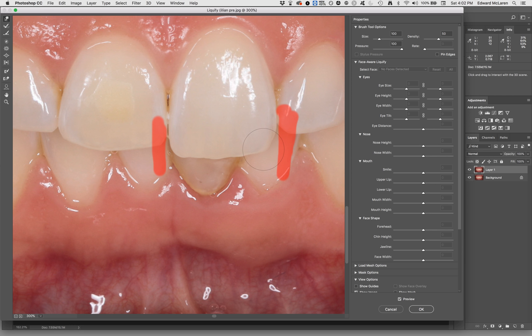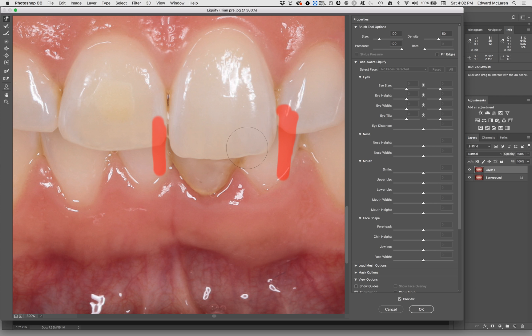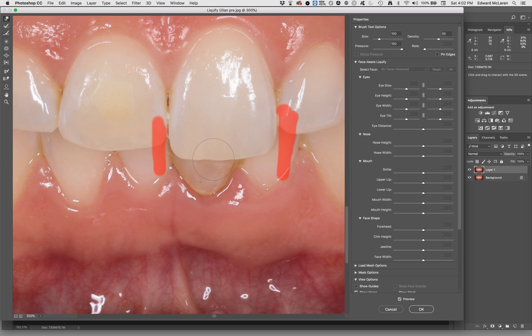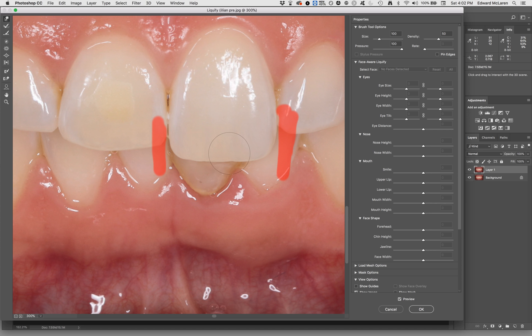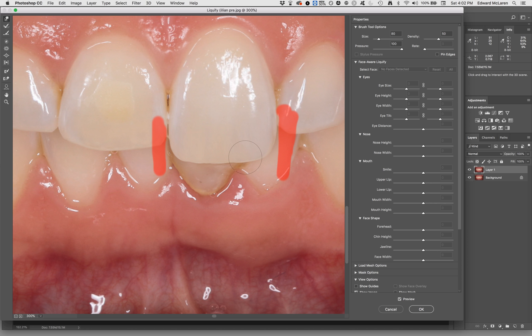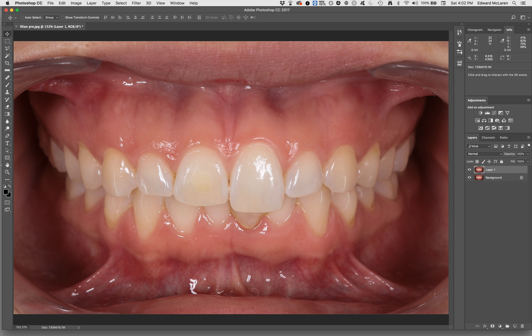And I didn't really want to spend a lot of time doing this. It takes a lot of time. It takes more time for me to tell you how to do it than me to just sit and do it. It would take me normally about 20 minutes to do somebody's teeth. And you can play around with the incisal edge and create little incisal effects if you want. Make everything a little bit unique. I would typically do one tooth at a time like this. There's other techniques. I can copy and duplicate tooth. I can extract this tooth. Once I've designed this tooth, I can just select the shape of this tooth. And I can copy and paste it on the adjacent tooth. How you can get and save time. Then I can do other tooth individually. All right. When you get good at this, I would recommend you sit in front of the patient and do it individually.